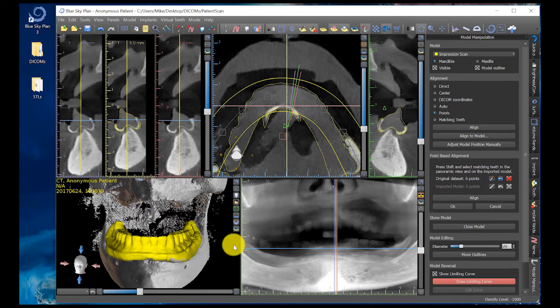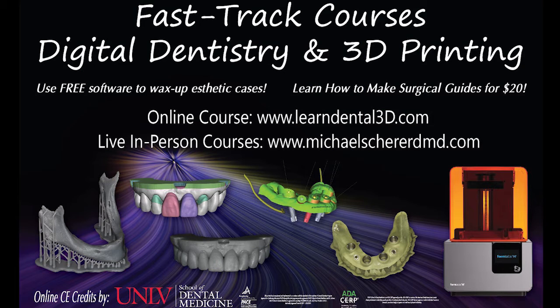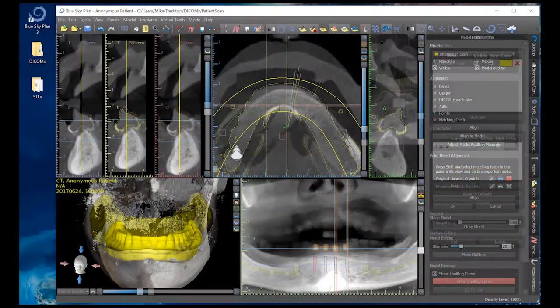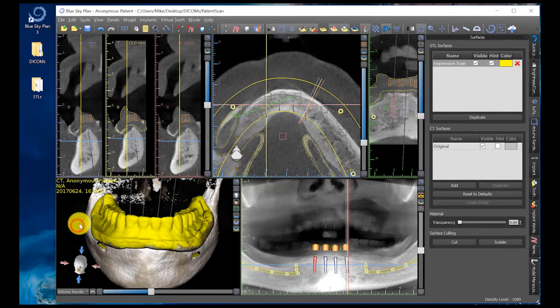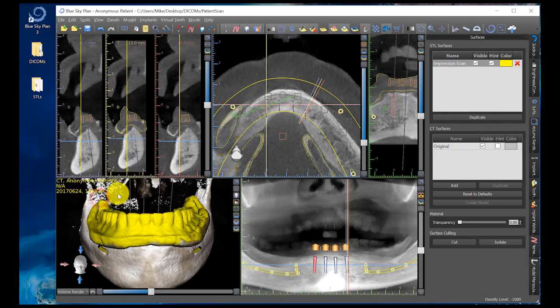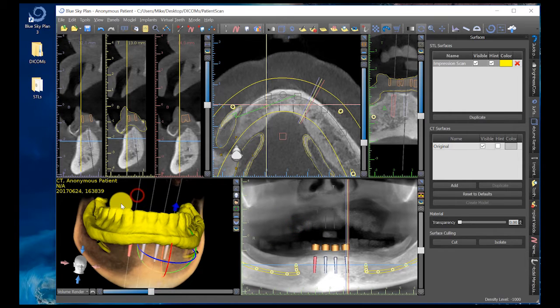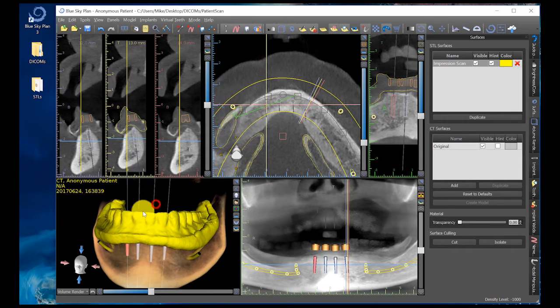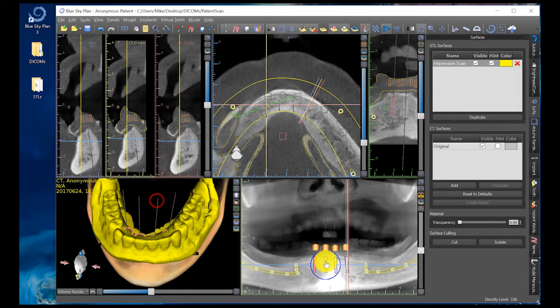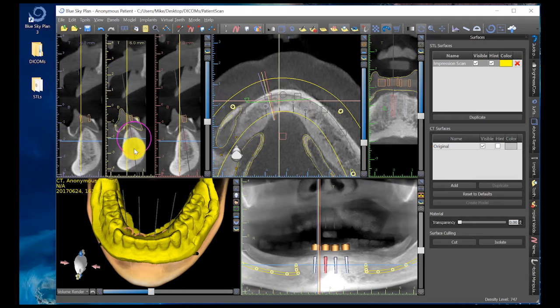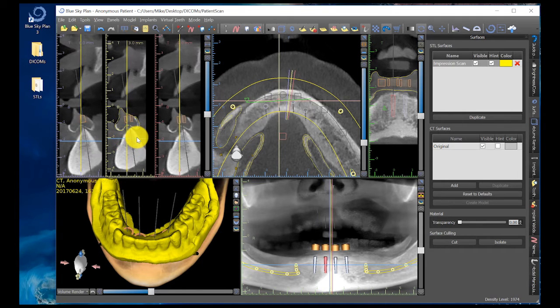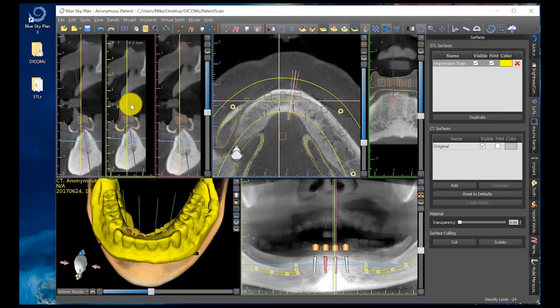Now we need to go ahead and plan our Lodi implants. If you're interested in learning how to plan everything in Blue Sky Plan software, please check out the online course at www.learndental3d.com. We're going to skip forward to the section showing how to design the surgical guide after the implants are fully placed. Now that my implants have been turned on, I'll show the actual surgical guide fabrication. Clicking on the skull icon in the bottom left-hand corner, then Presets and Non-Shaded Bones, it shows my four Lodi implants in the bone volume, all in proper position.